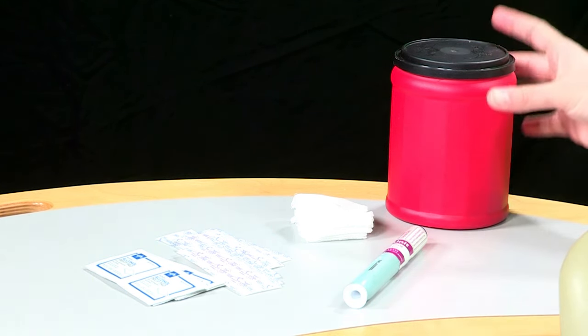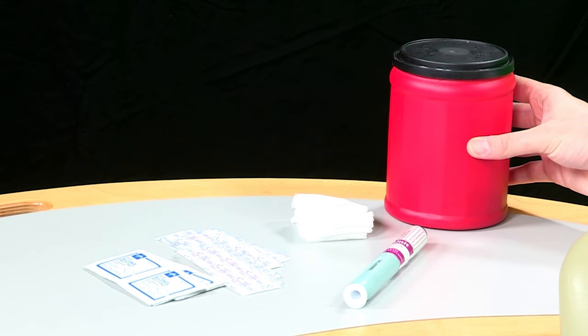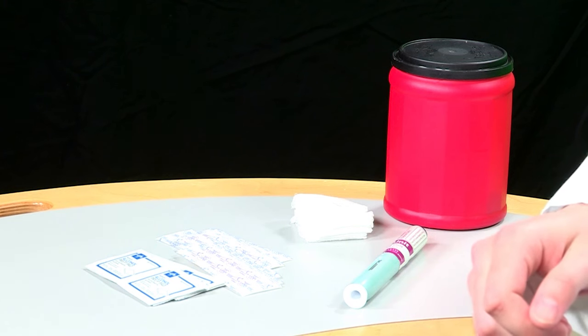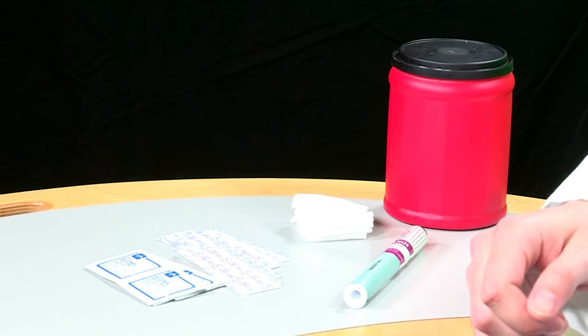If you don't have a sharps disposal container, you can use an empty liquid detergent bottle on which you have clearly labeled used needles inside. And of course, the Erenumab autoinjector itself.